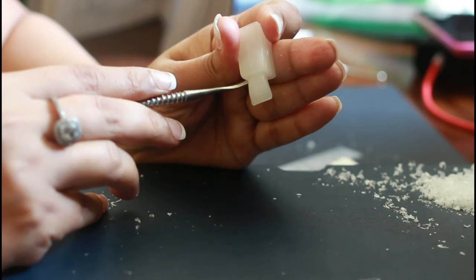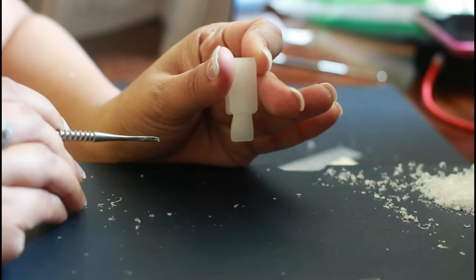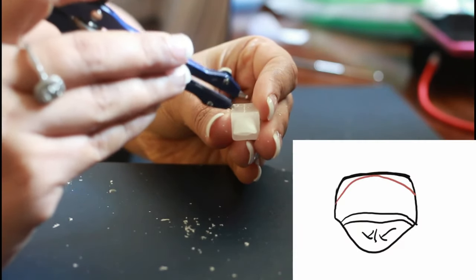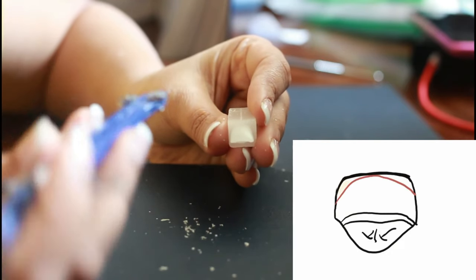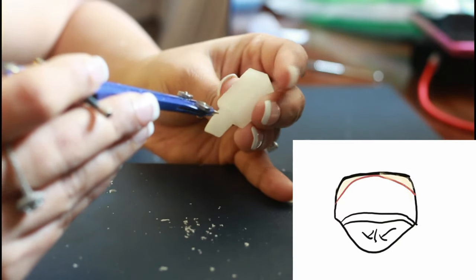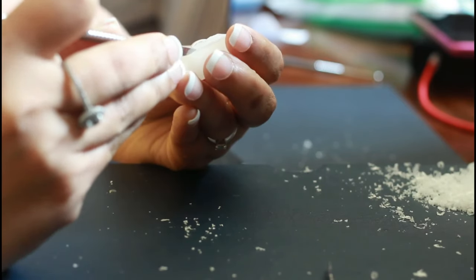Looking from the labial, you want to give a little ditch at the neck on the distal surface, so deepening just a tiny bit there gives the ditch. I'm visualizing again from the occlusal aspect to watch out for any errors. I still see a lot of tooth structure at the neck of the crown which shouldn't be visible, so I'll measure back the neck of the tooth and see how much of the labial aspect I can taper in.